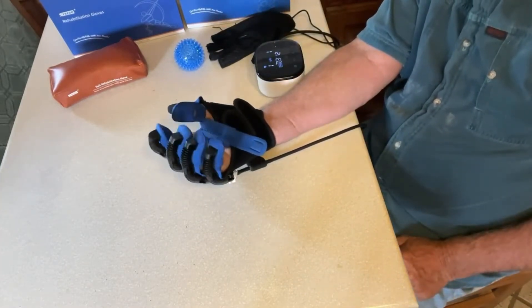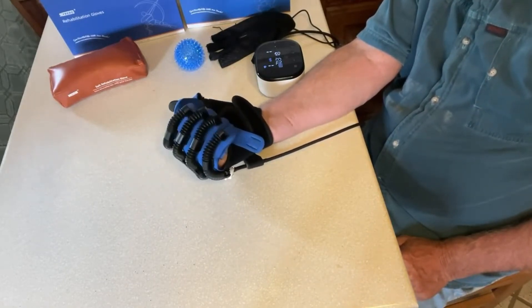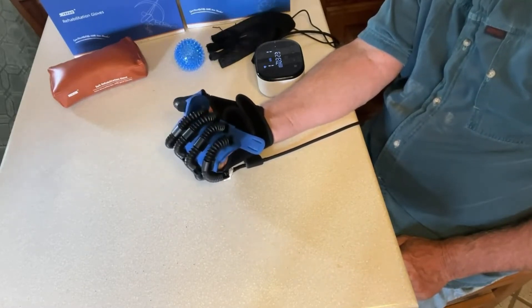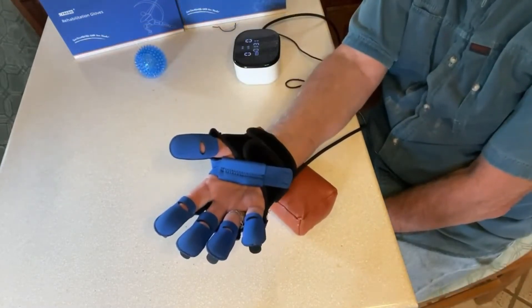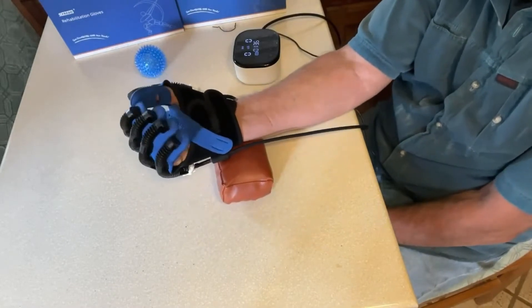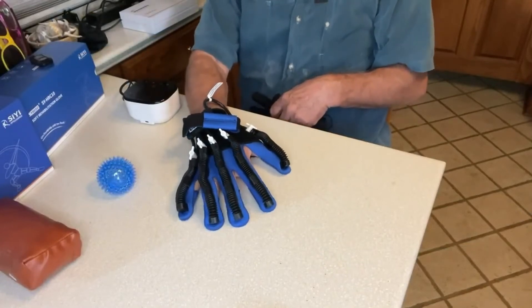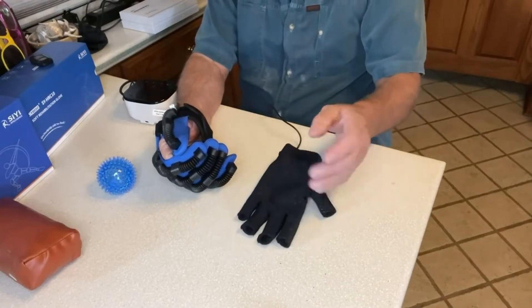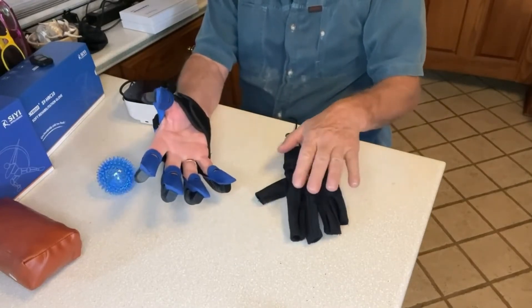It's comfortable. Definitely stretching out my fingers, making a fist — I'm going to call that punching mode. We can use this little pad to lay on to make it more comfortable. That was passive training mode, and now we're going to try mirror mode, where the data glove goes on the good hand and the robotic glove mirrors what you do.